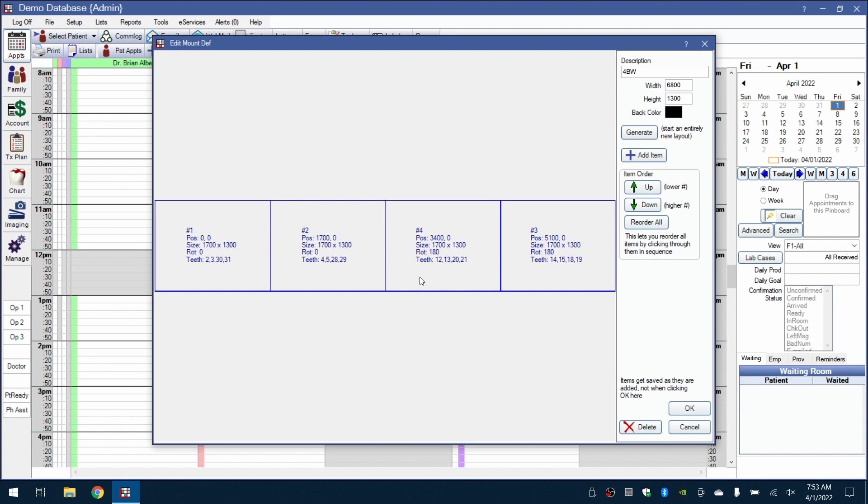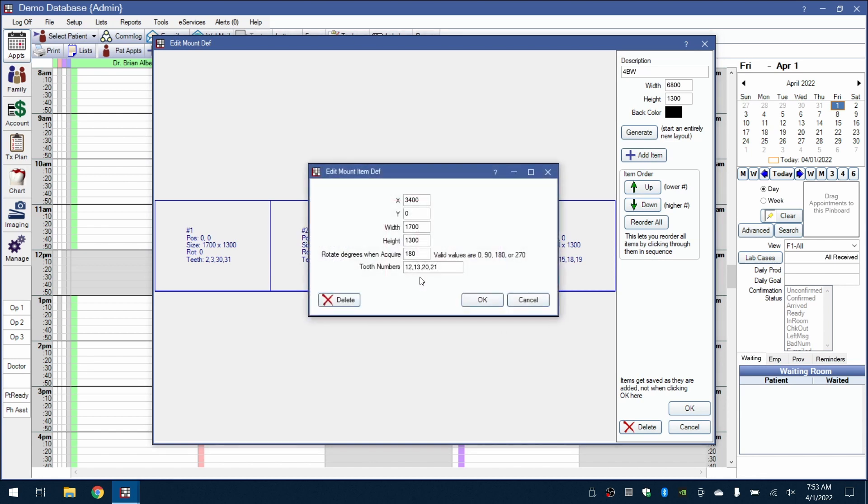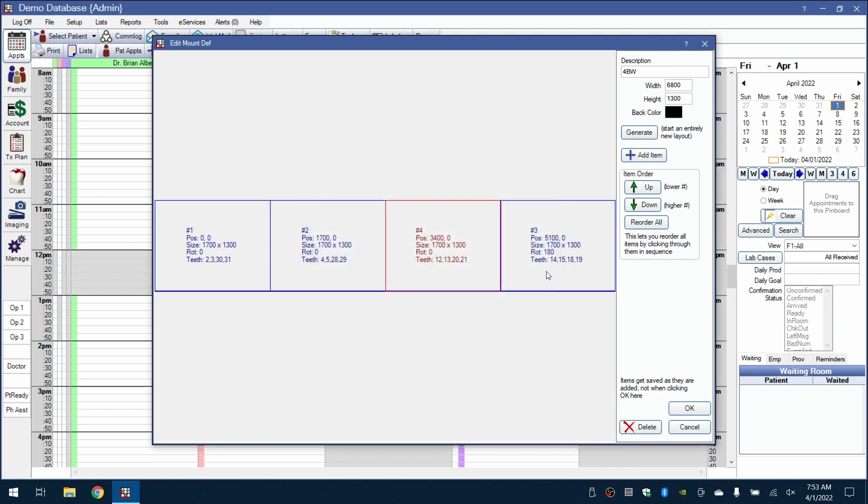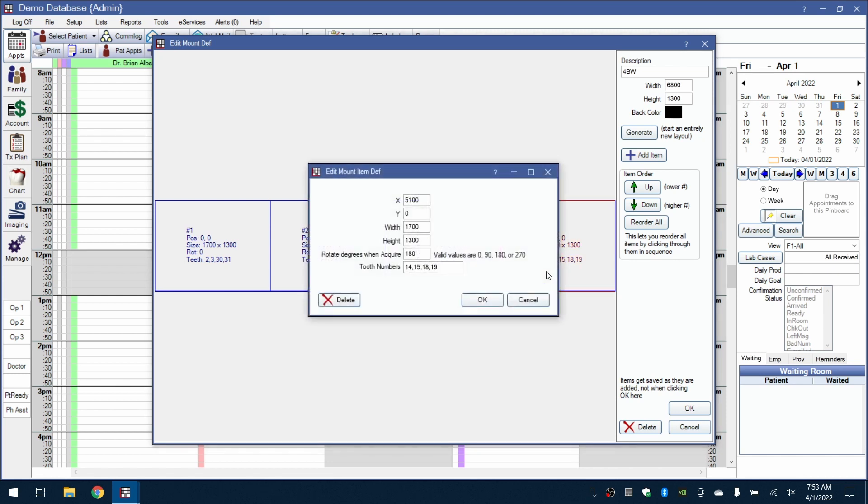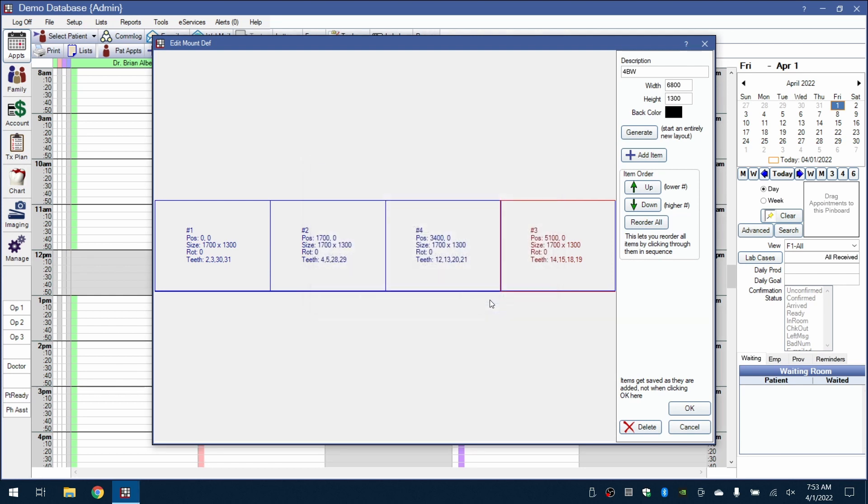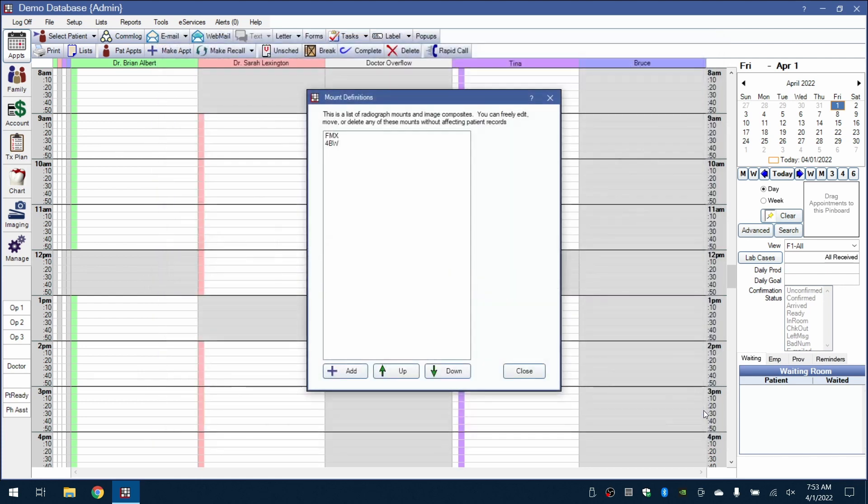Because the blue driver will handle the orientation of the images, we're going to set the rotation of each input as zero. To access this menu, you just double-click on each mount and then set the rotation. Click OK when you're done.